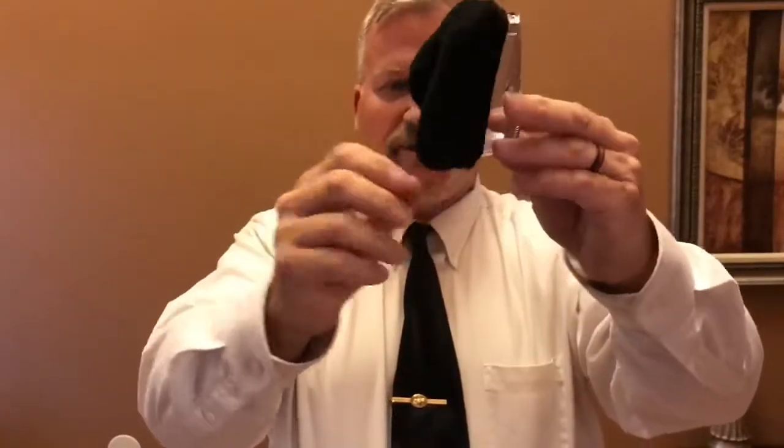Now it's going to be a little bit tight so you may have to adjust your mask straps, but after that you're going to have a good night's sleep.